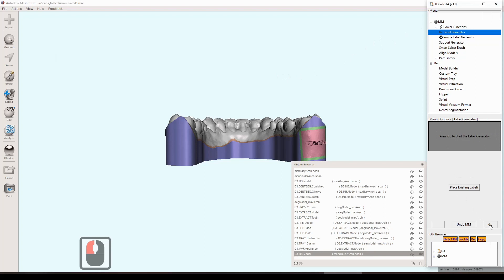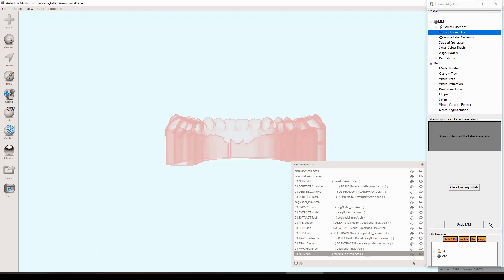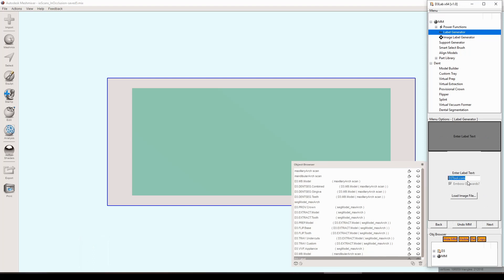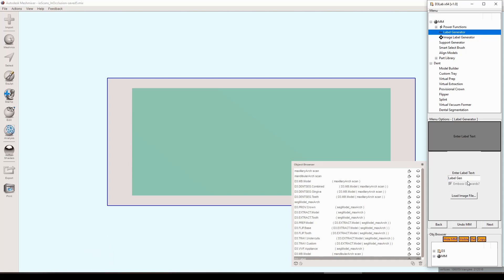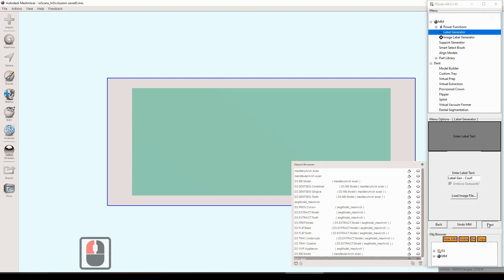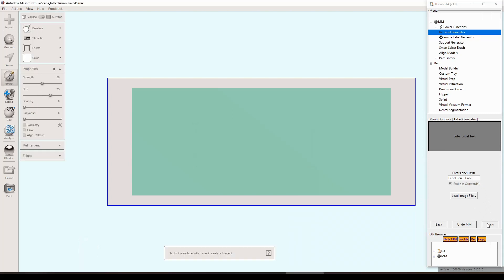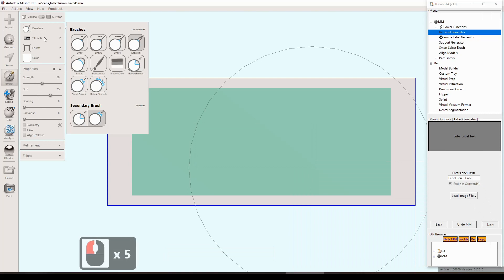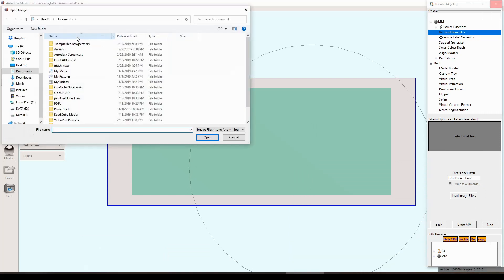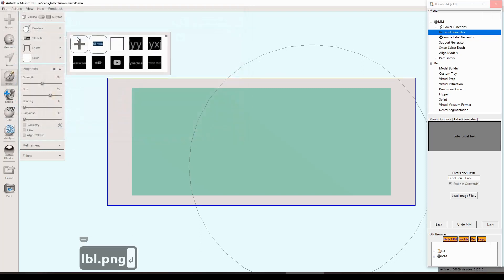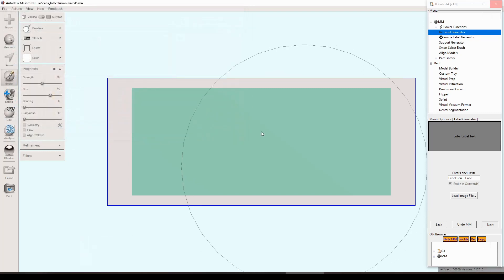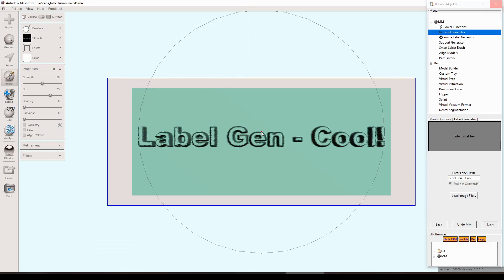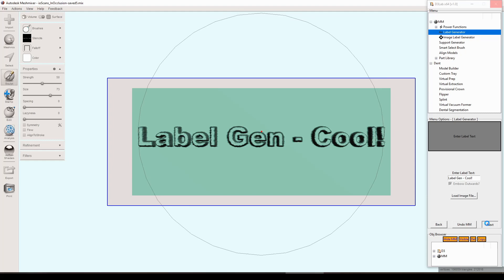It asks you if you have an existing label or not. At this point we don't, we're making a new one. We can enter in some text here. There is a new button down at the bottom there that says load image file, so in case you have mistakenly started a text label and then you realize you want to do an image instead, you can click that button and it will bring you into the image label generator tool. But this is our quick label here. We're going to hit next and at that prompt we're just going to hit the space bar and just let go of the mouse. Again, part of this is controlling the mouse to do certain clicks with the stencils, so you just kind of got to back off just for a second and let it do its thing.